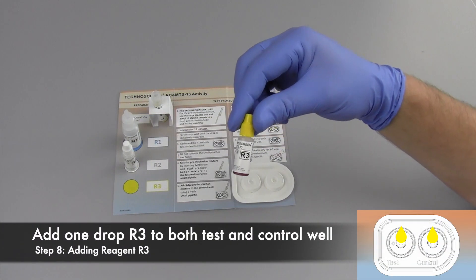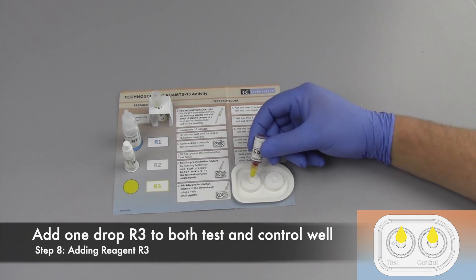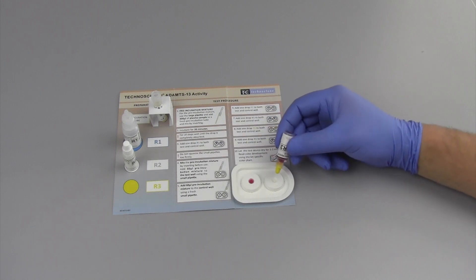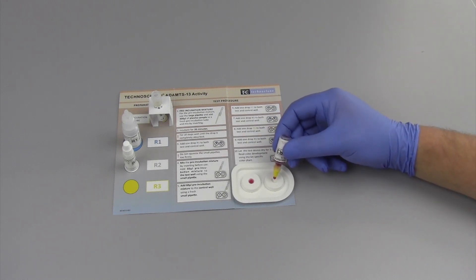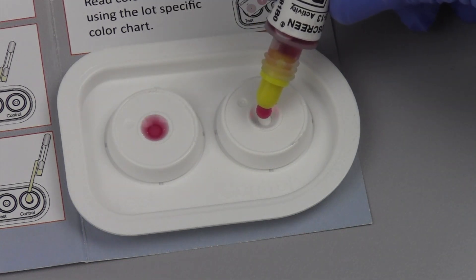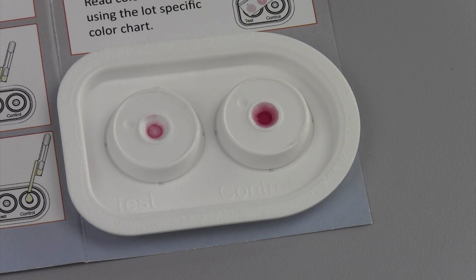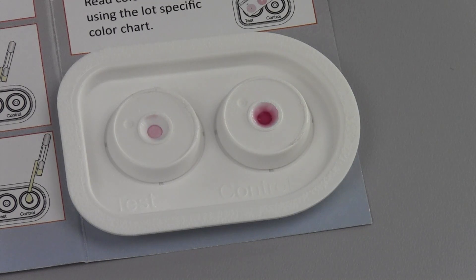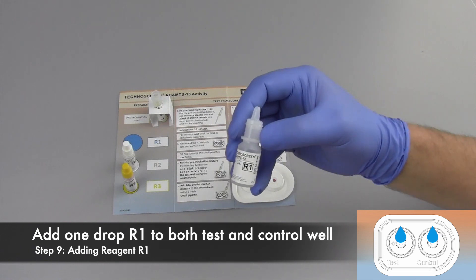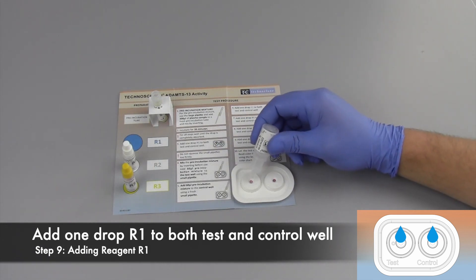Next, Reagent 3 will be added to the test and control well. Add one drop to both wells. Finally, a washing step is necessary. Add one drop of Reagent 1 to both test and control well.